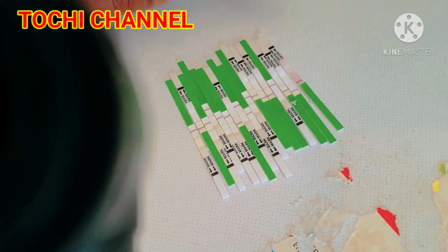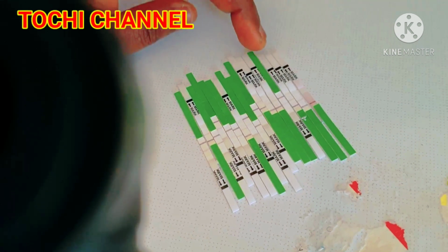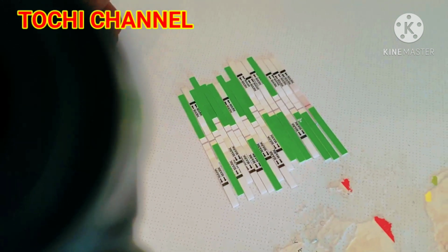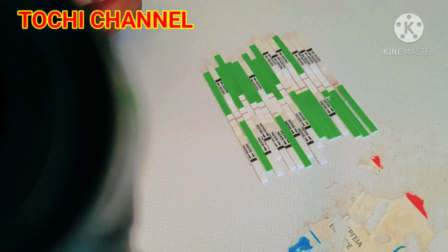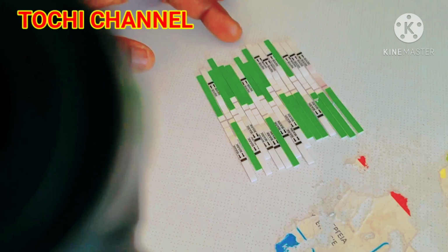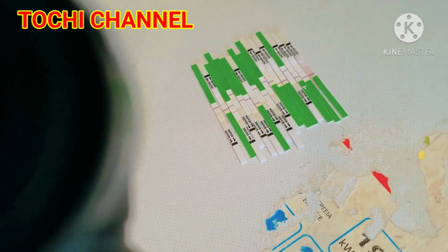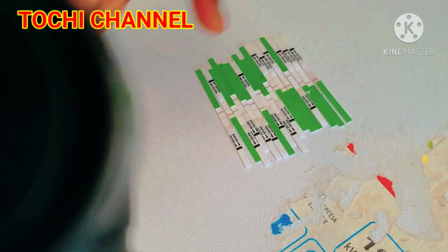And as you can see, you can write the day you started. You can write CD1, CD2, CD3, CD4. If you don't know how to calculate your ovulation, I advise you to start earlier. Start maybe on the 9th or 10th day of your cycle so that you will get an accurate result. This is very, very important for women who are planning to conceive. I wish you good luck as you do this.